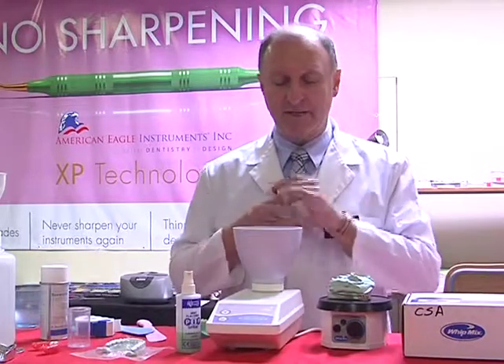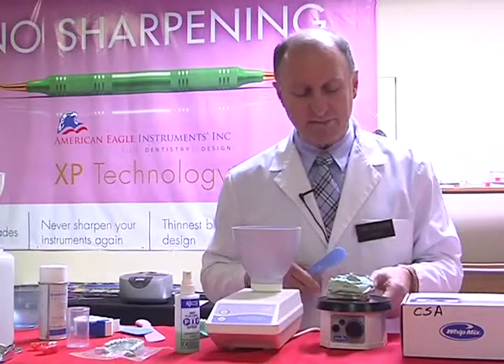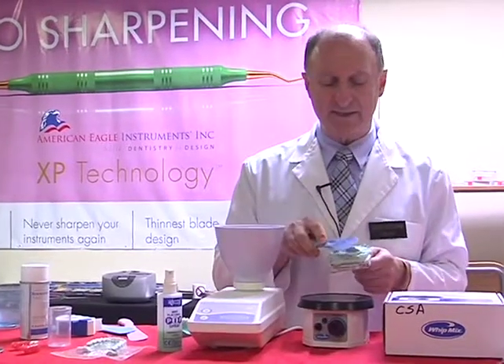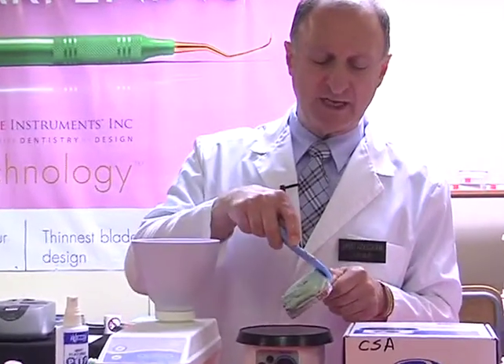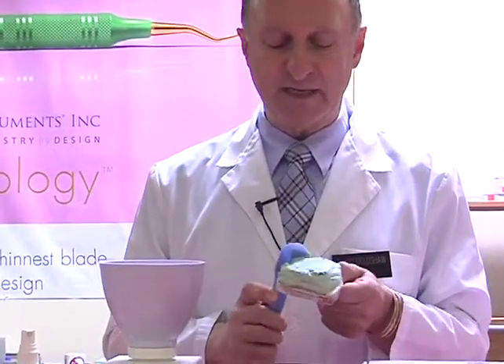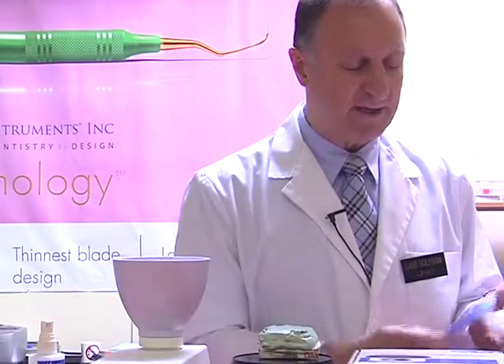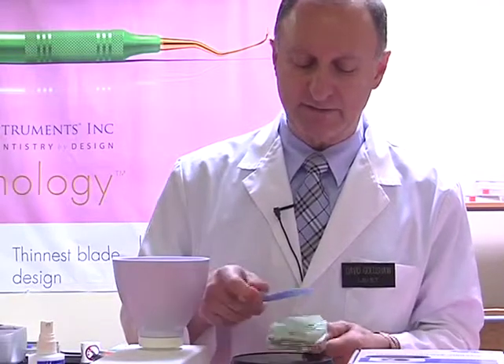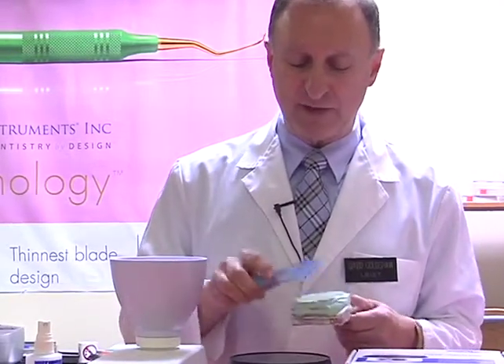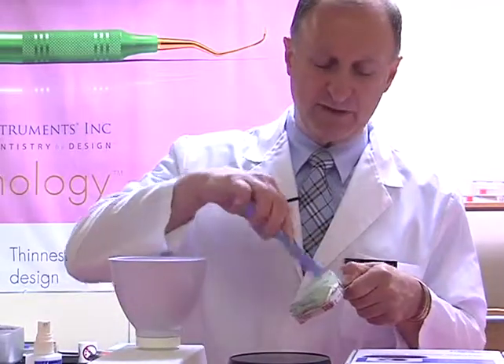We can put our alginator aside, but come back to our model. So again, we've waited for that surface shine to dissipate, and then we can actually smooth now our surface and begin to shape our stone. And this is going to save us a lot more time than later on, when the stone will be hard. So I'm just lightly going to flatten out the surface. I'm still going to have enough base, which of course is very important. We need to have a good base on our model.